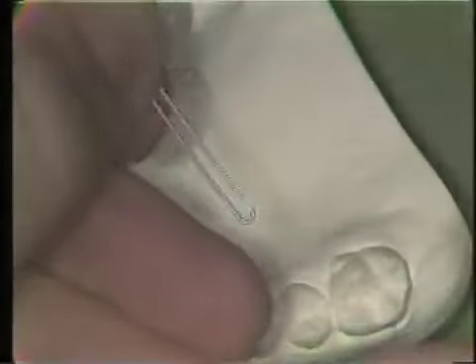The first step is to bend a small loop in the wire. The loop has outside dimensions of one and a half to two millimeters. Placing the beaks on the inside of the loop, a right angle bend is made and then the loop is turned to be at 30 to 45 degrees to the straight portion of the wire.